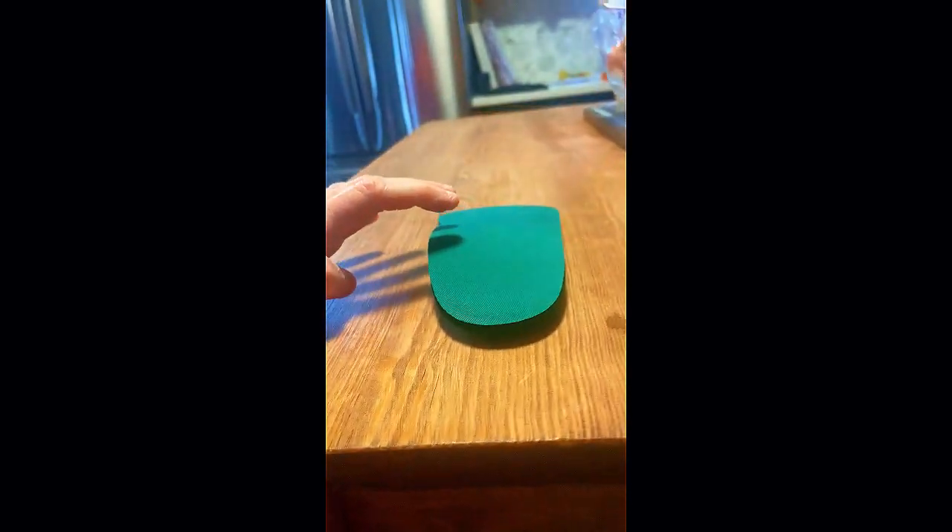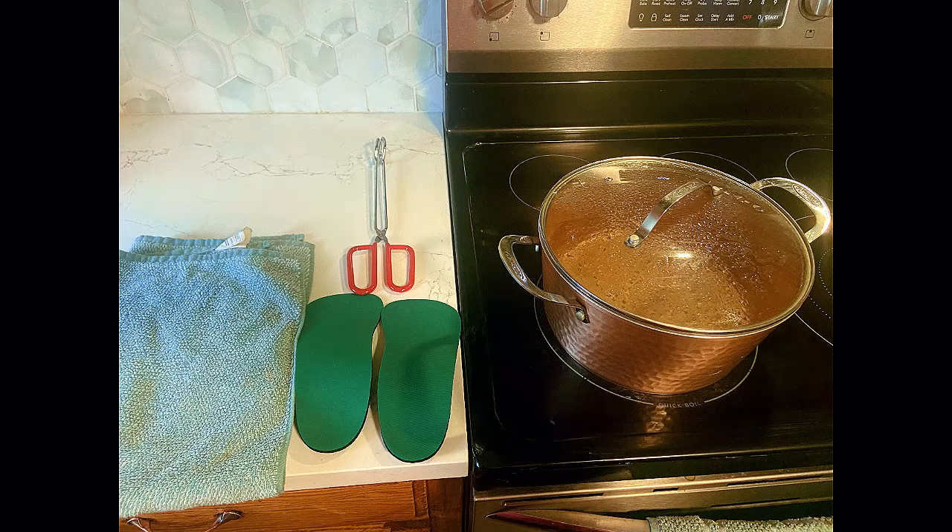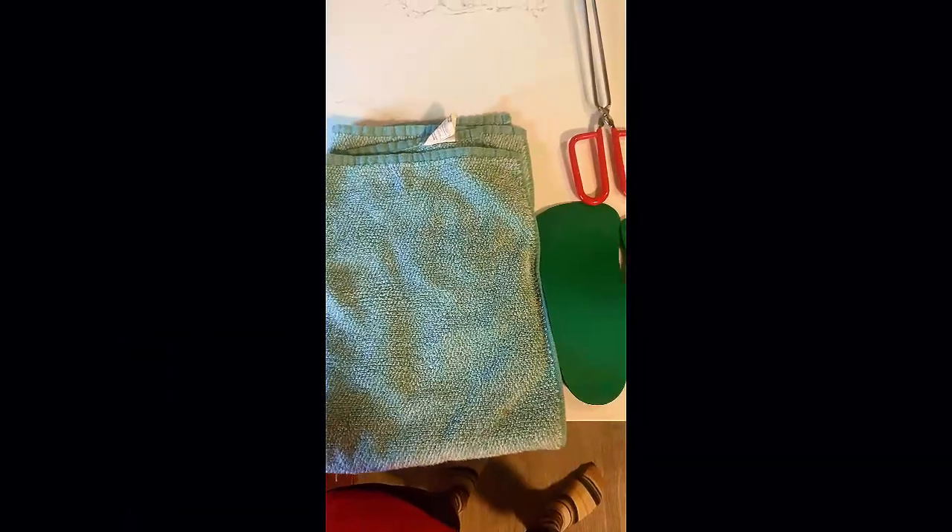The plastic part here — you want to make sure it doesn't press up into the ball of your foot. It's a flexible arch. The heel counter does need to be a little deeper than what it is here.